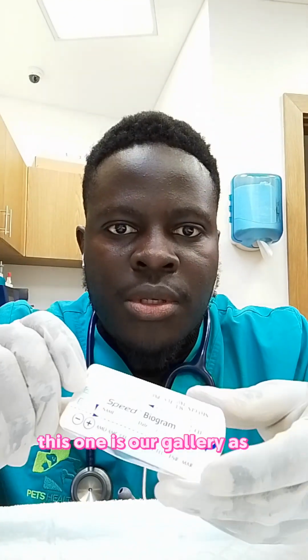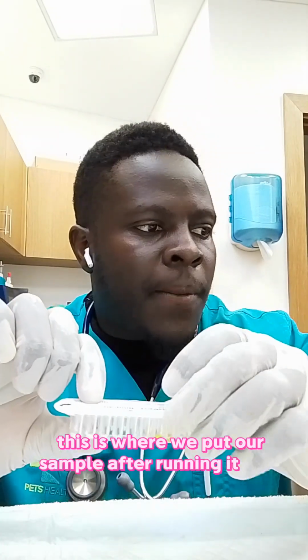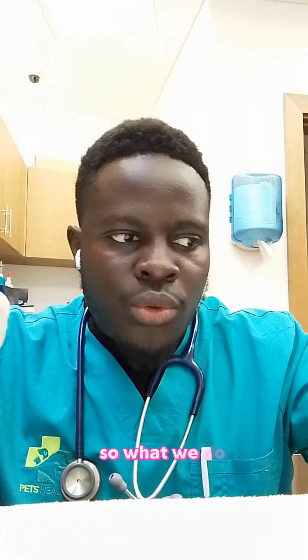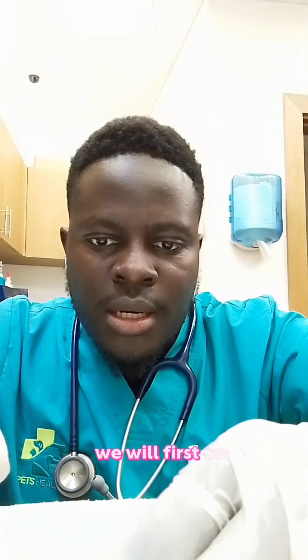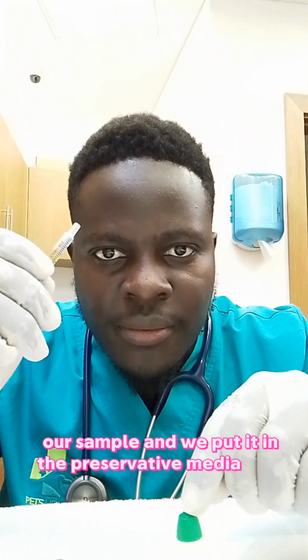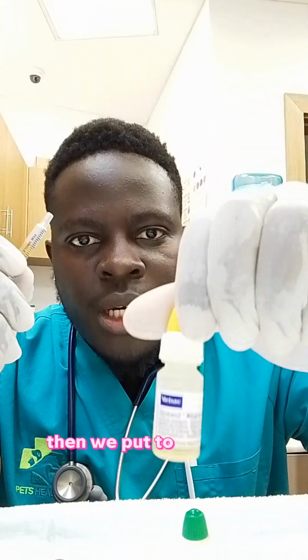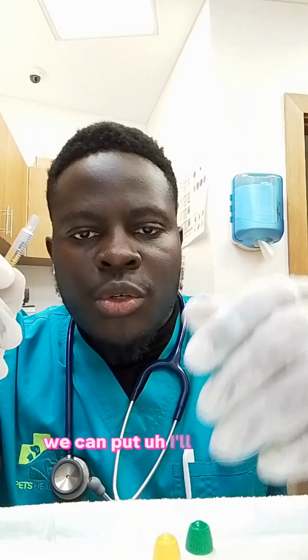And then this one is our gallery, as you can see. This is where we put our sample after running it. This is our sample. So what we do, we will first use the preservative. We first get our sample and put it in the preservative media. Then we put it in the culture media, and I'll show you in a second.